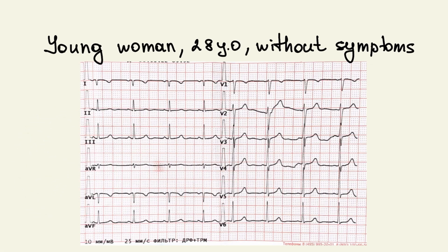What's wrong with this ECG? This ECG is from a young woman, 28 years old, without symptoms. Let's analyze the heart rhythm.